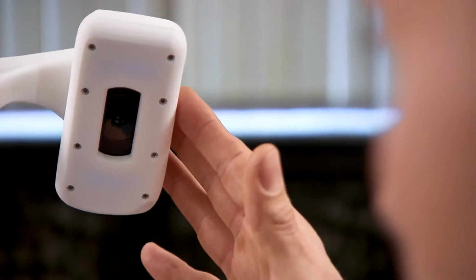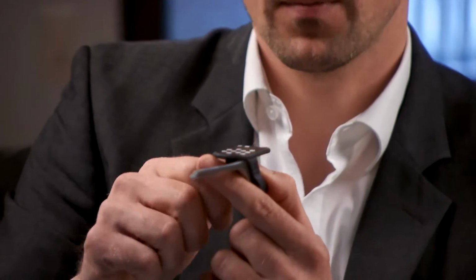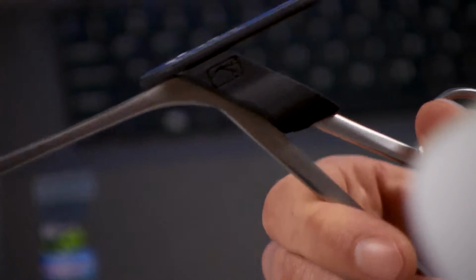This is the Phacon holder with a holder tray in order to fix the artificial model. This is the Phacon tracking camera. With this tracking device you can track various instruments, your own instruments. Therefore we provide different trackers, for example a tracker for a grasper, and then you have a navigated grasper.